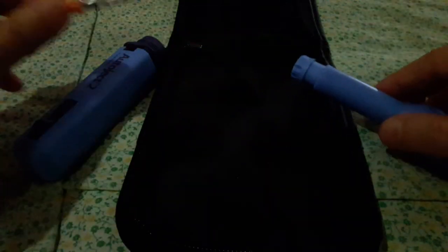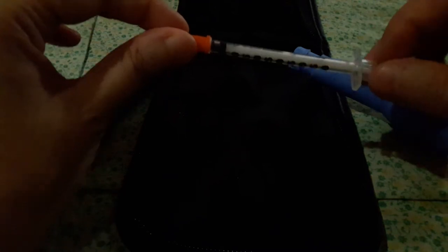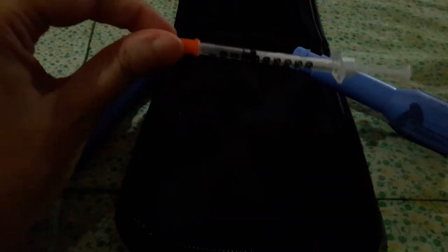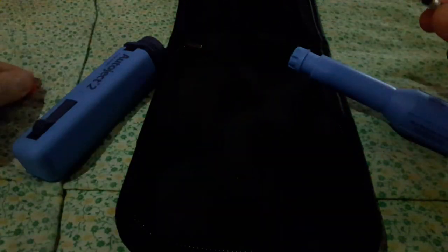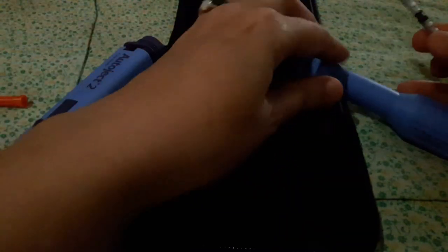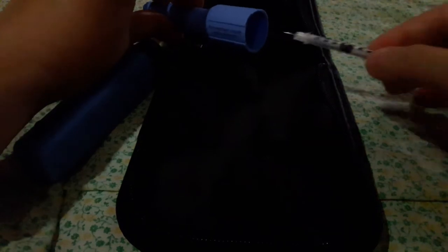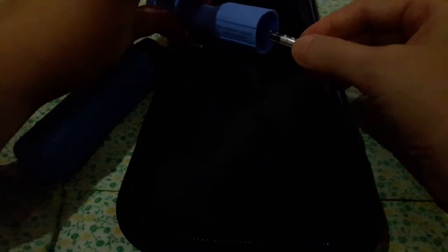So what happens, just the basic concept of this device, is that you're going to take your needle, whatever dose it is I'm just showing you, and your needle will go inside this part. So you see there's a little chamber in there. And you just put your needle in, and you turn it, and screw on the other part.